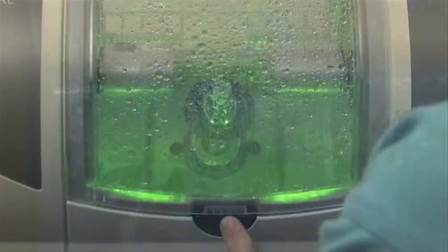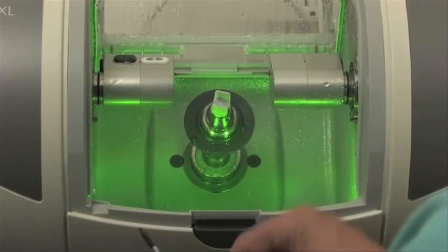Like Michelangelo creating a sculpture from a block of marble, these burrs work in unison to create a perfect crown, onlay, or veneer.